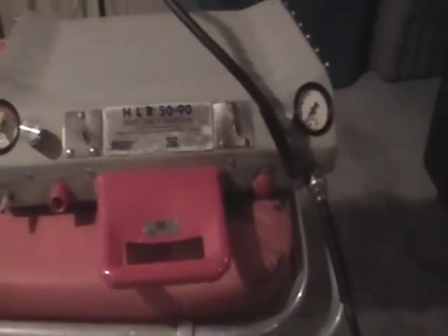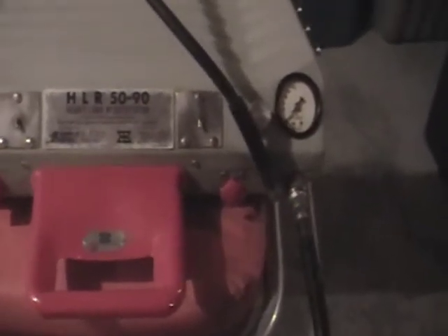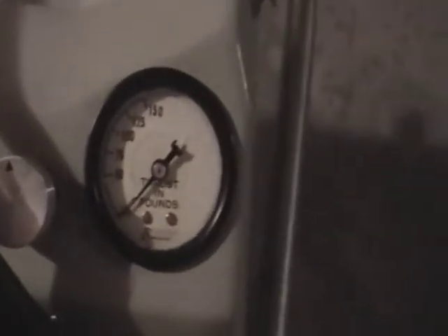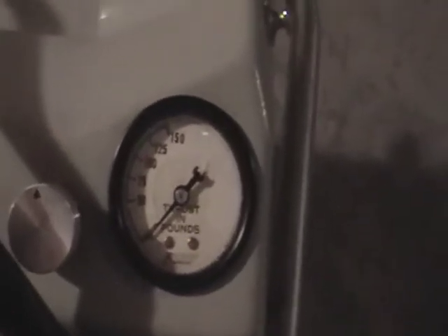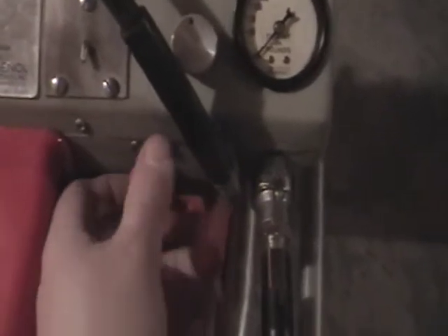It's fairly straightforward — both cylinders connect to this regulator, so the hose comes to the right of the machine. This is the heart-lung resuscitator. This knob here sets the amount of thrust in pounds, from 50 to 150 pounds of thrust.